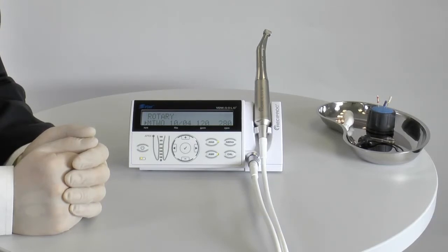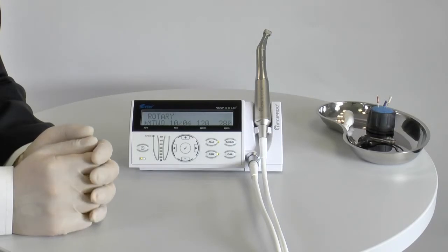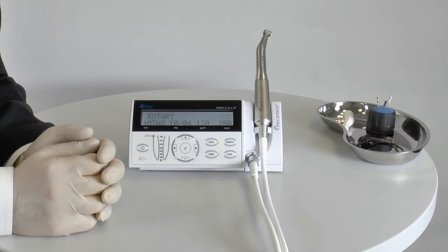When the ANA key lights green, all torque values are lowered. This can be helpful when preparing difficult canal anatomies.